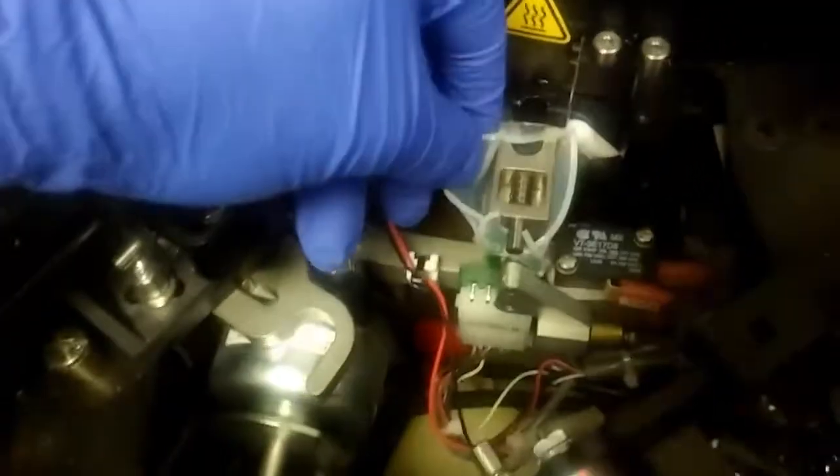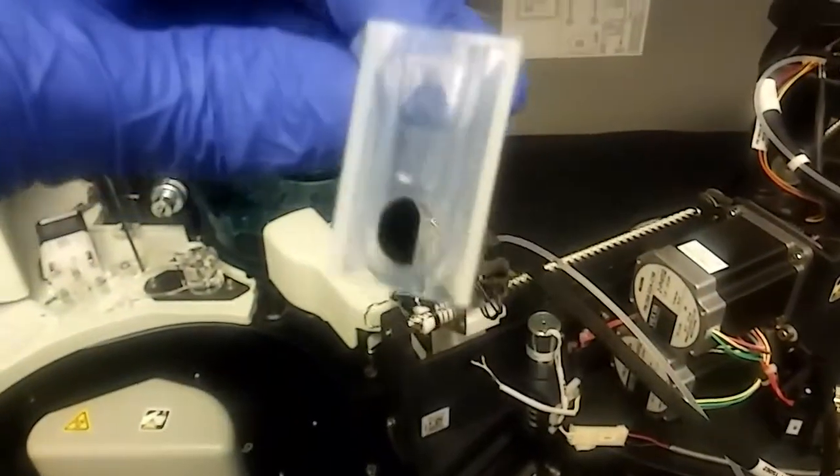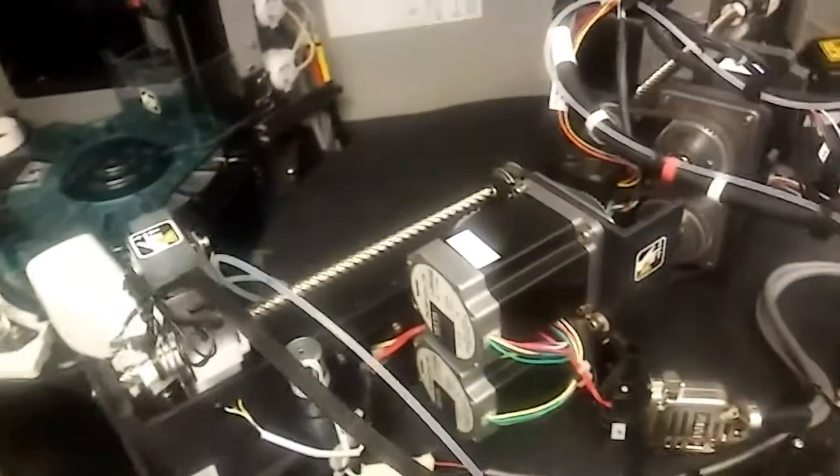You can see this is what punctures it and makes your cuvette. Go ahead and pull that off and you can see where it kind of wears at the top — sometimes it'll even poke a hole through it. But this one's okay.